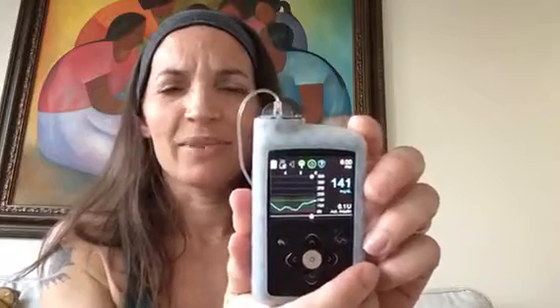In today's one hour, after adding up all of my micro boluses — including times where there were no micro boluses — I received 0.525 units. I would normally receive 1.25 units in one hour at this time of day. That means today my grand tally was 42% of my normal rate — the equivalent of a 42% temp basal. I can see I'm sitting at 141 back in manual mode.